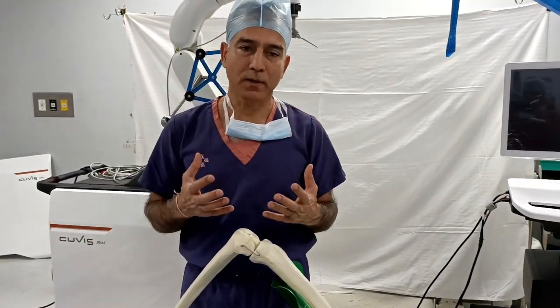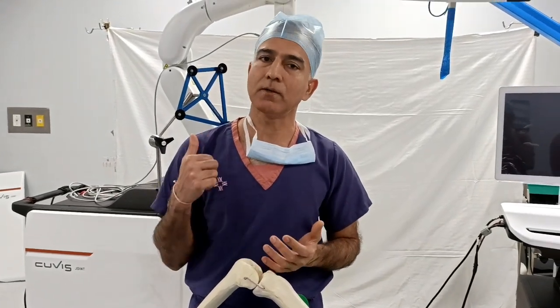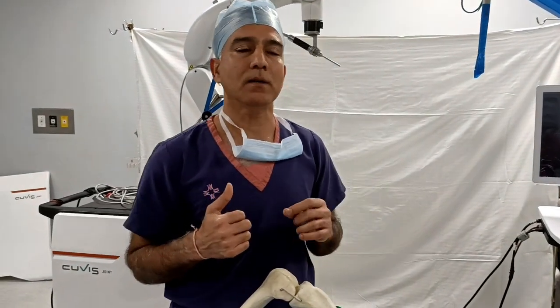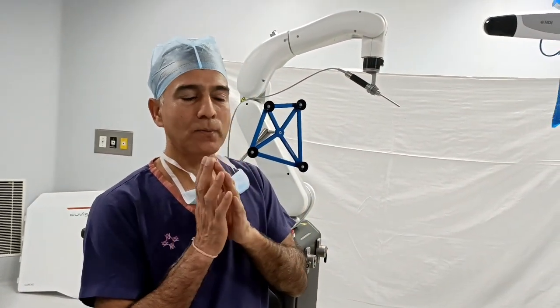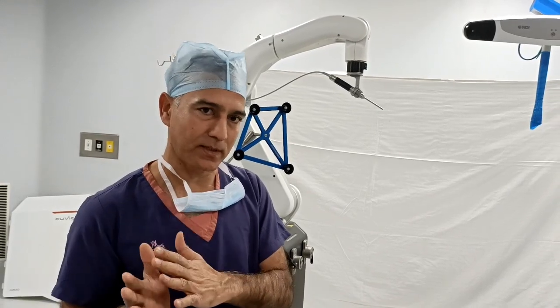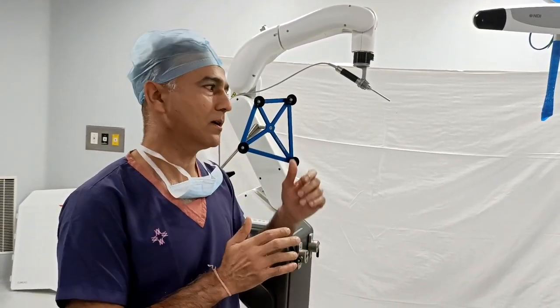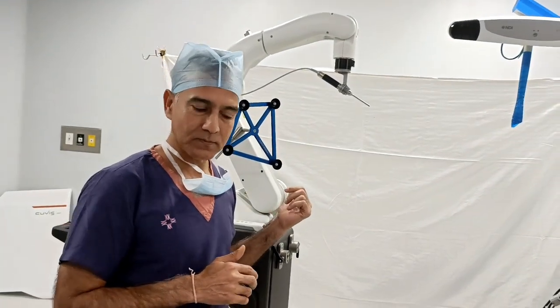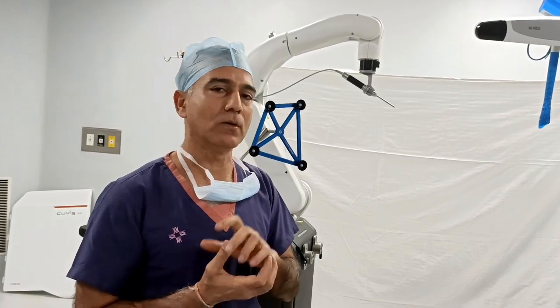If we work with an eyeball assessment, then there is a chance of mistake. But when a robot works with this, that mistake is eliminated. That means we are giving you the best of surgical expertise — the MIS technique — plus the best implant positioning by robotic precision. This combination gives you both short-term and long-term benefits.